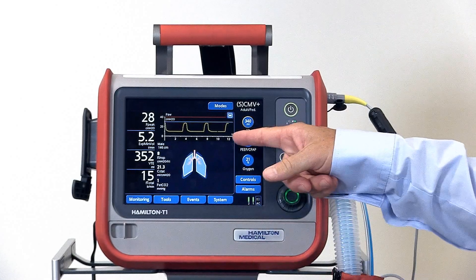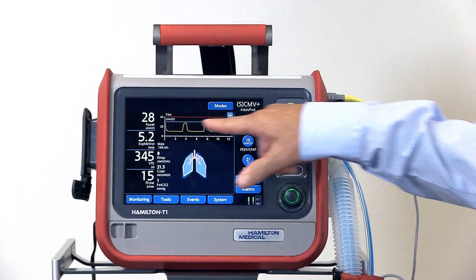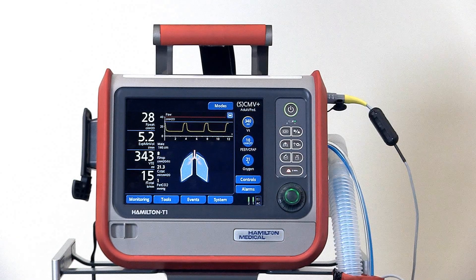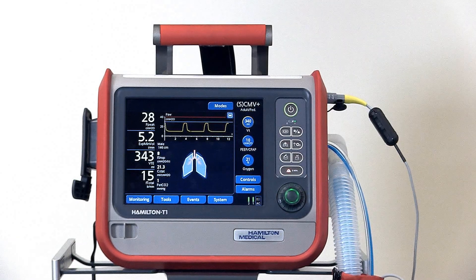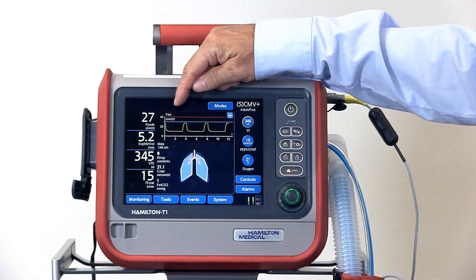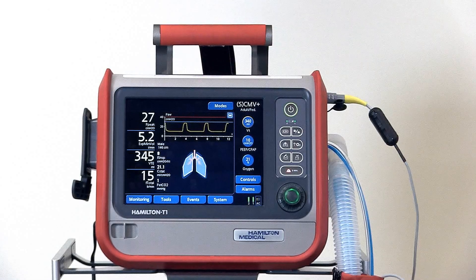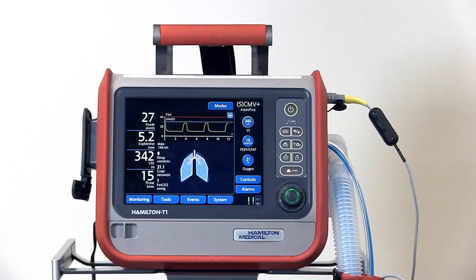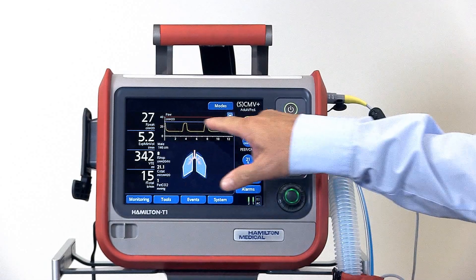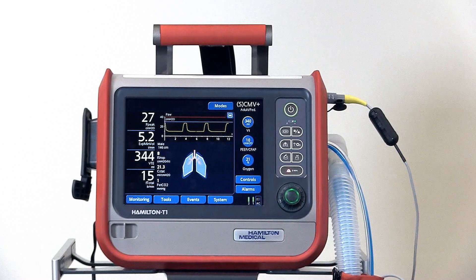In the middle part of the screen you'll see the graphics. The top graphic is the pressure waveform, which is fixed in place. On the pressure waveform you'll see a red line across the top indicating the high-pressure alarm setting, and a blue line below indicating the pressure limit setting.